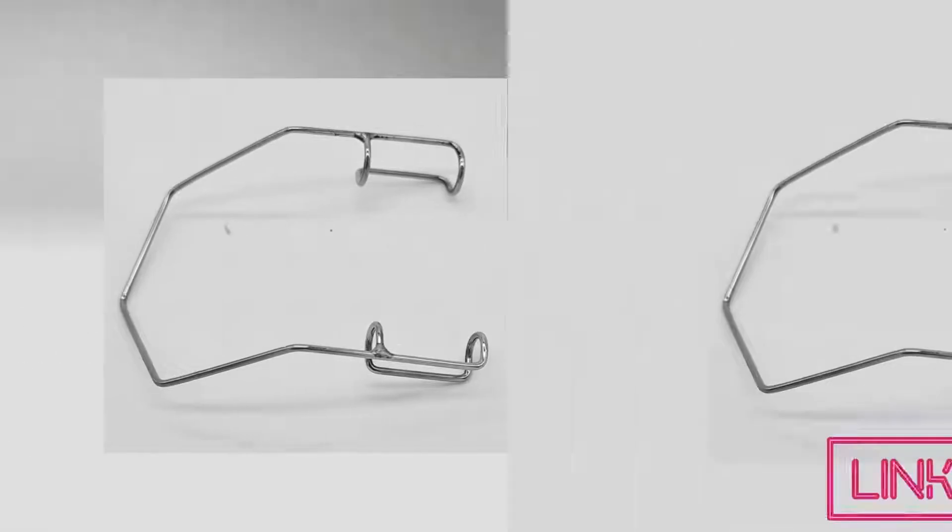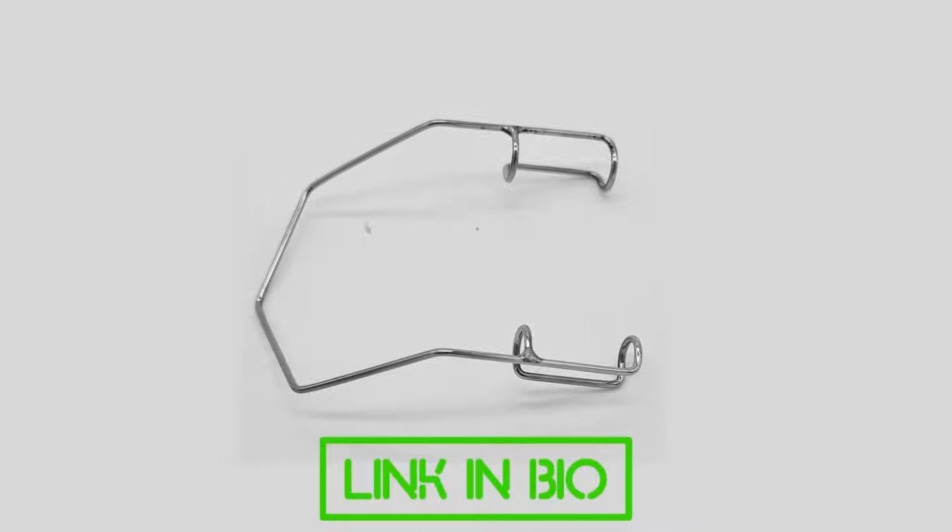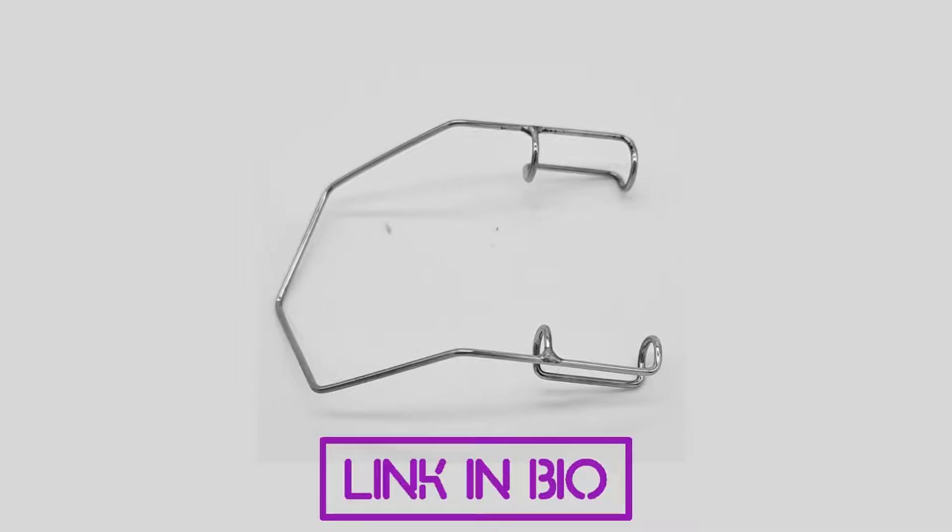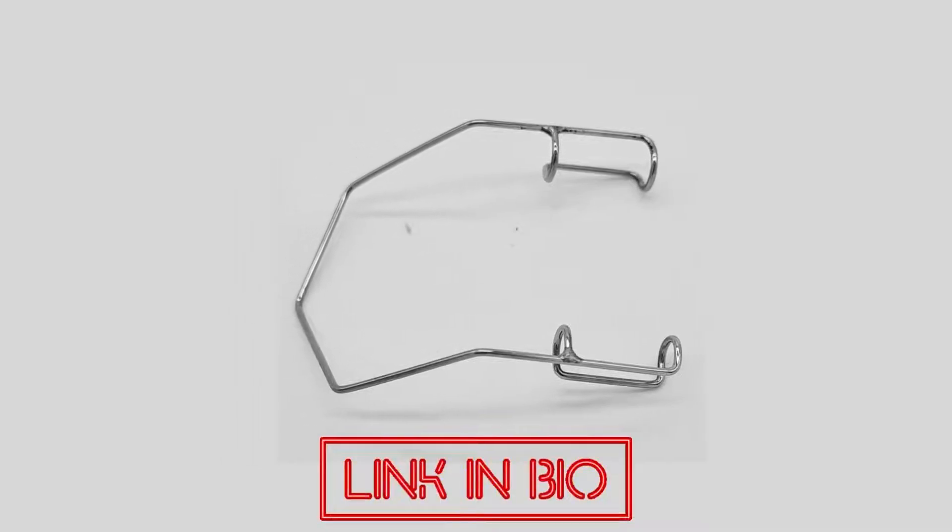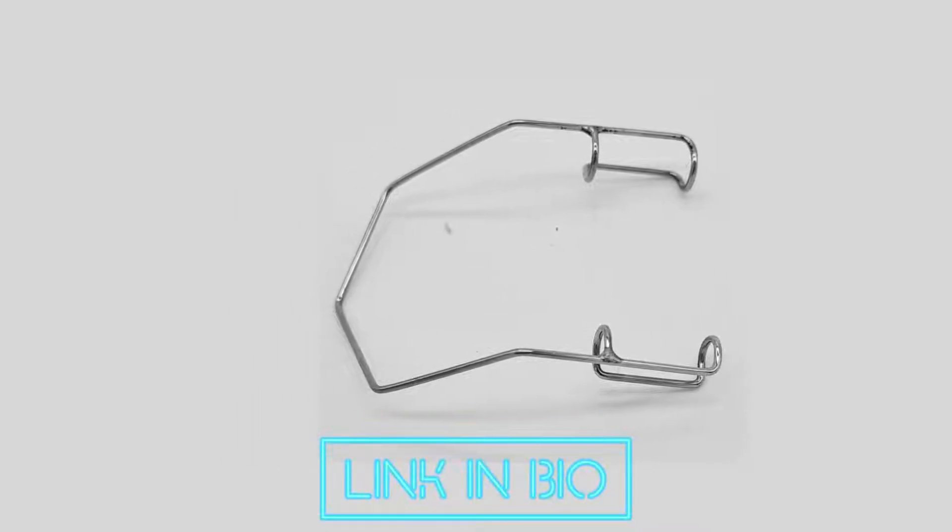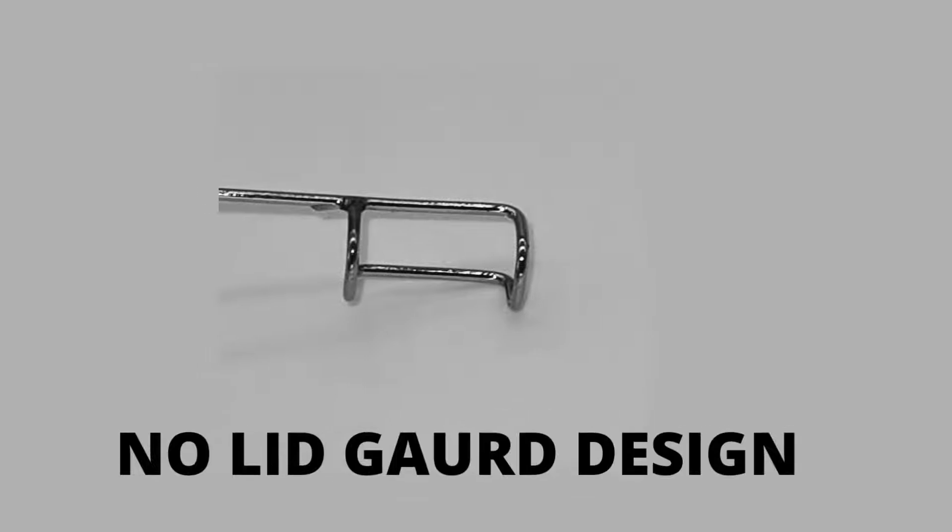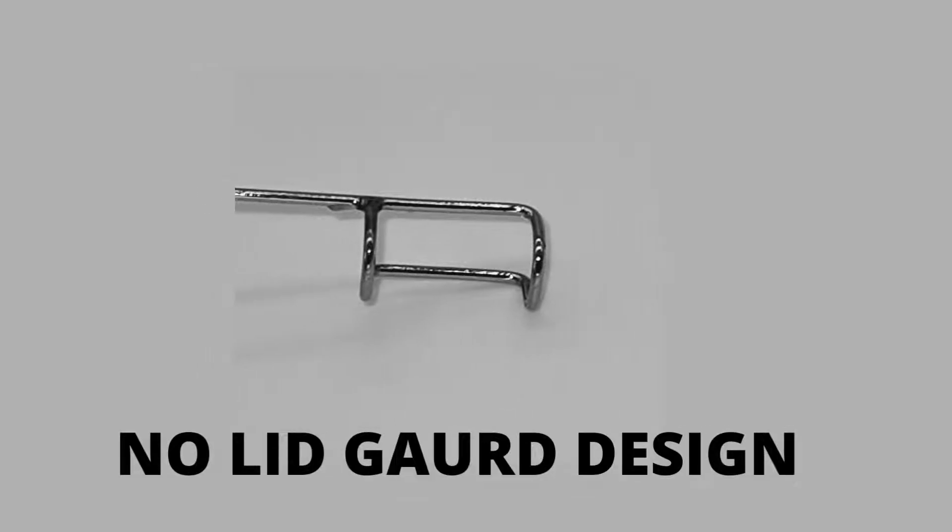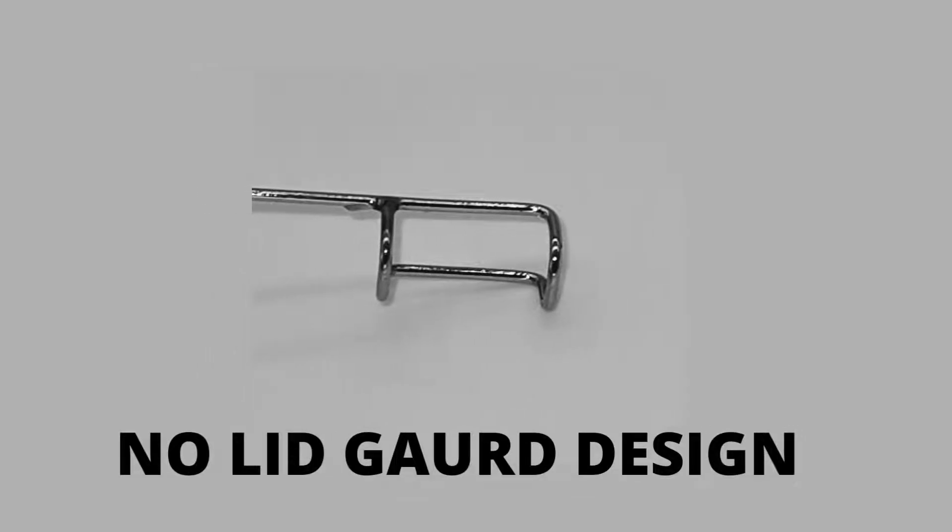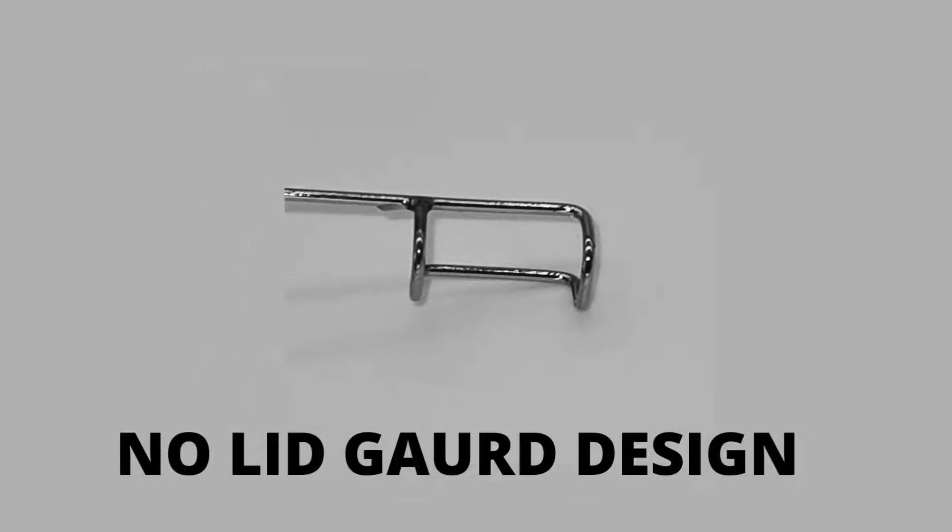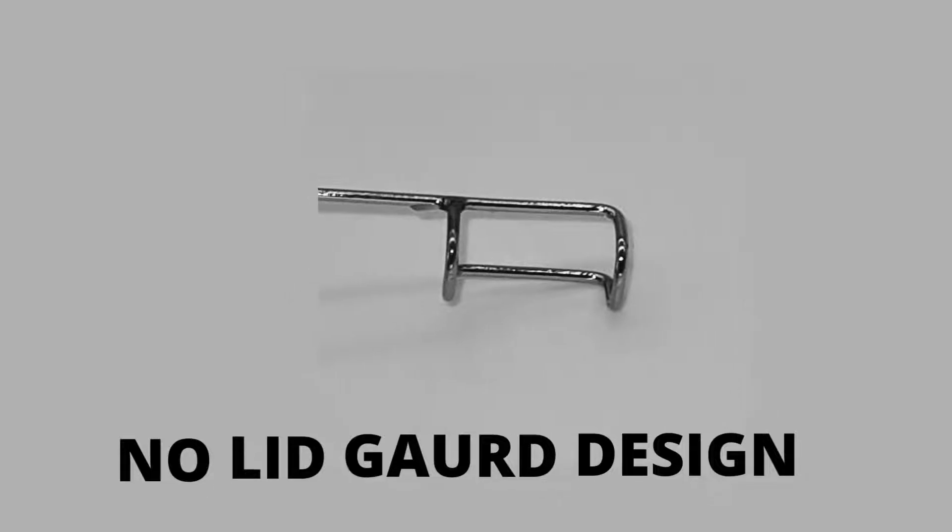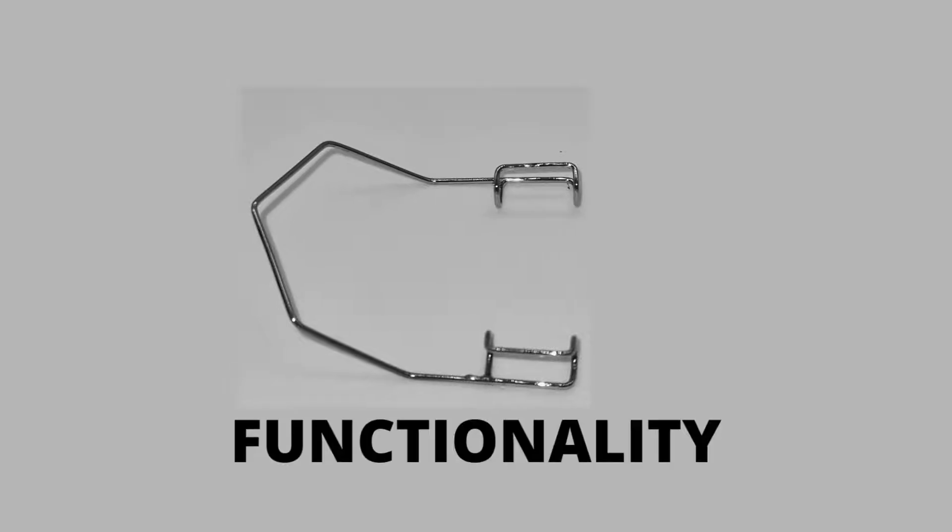Wire eye speculum is a surgical instrument used during various ophthalmological surgeries and procedures. The absence of lid guards on the wire eye speculum provides easy and wide opening of eyelids with fully exposed lid margins during surgery.